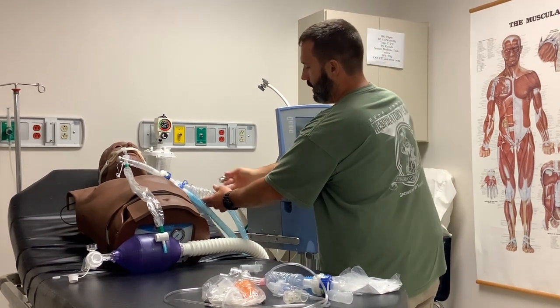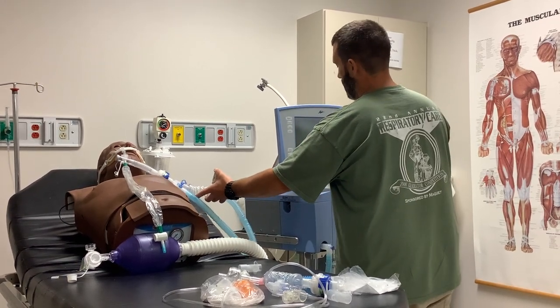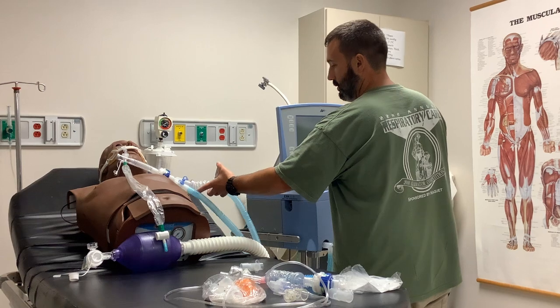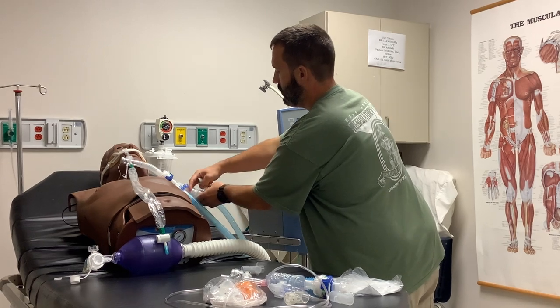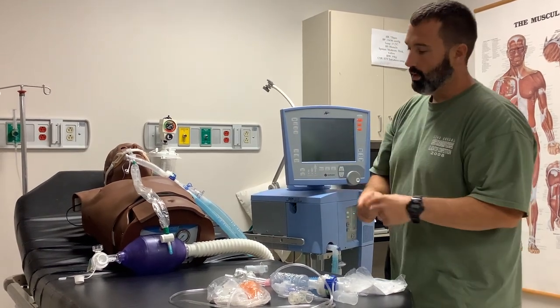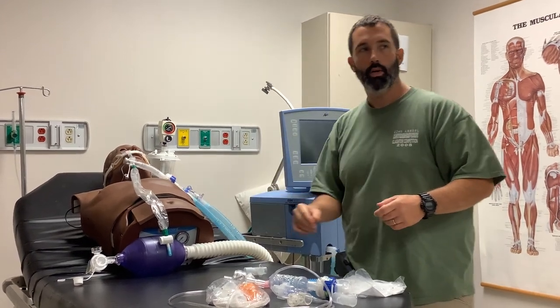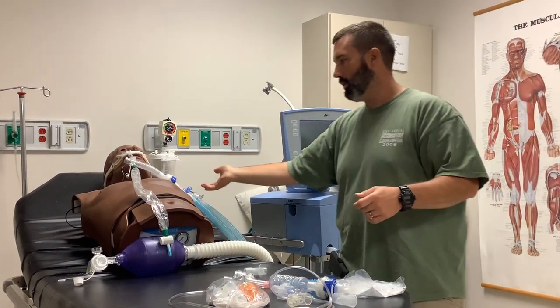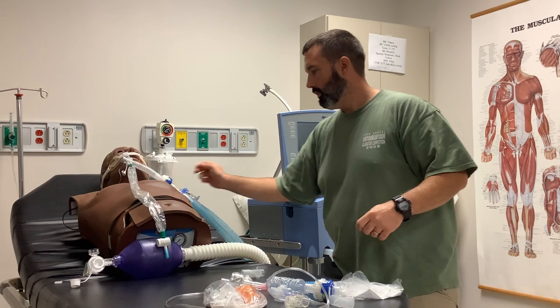You may get anywhere between two and four actuations. I usually support underneath with my hand, let it give a breath, then depress the canister and the inspiratory hold - not exactly simultaneously, there's a slight difference: depress the canister then do your inspiratory hold so that the breath can go through. To backtrack: if you're coming in to do the treatment on a patient, make sure you switch the HME over to aerosol before you do the treatment. If you didn't have that type of HME, pull the HME out, give the treatment, and then put the HME back in afterward. It absolutely must be switched to aerosol before you give any medication.